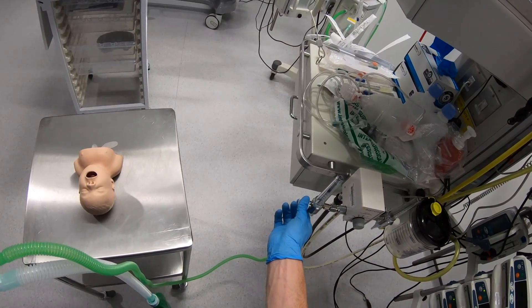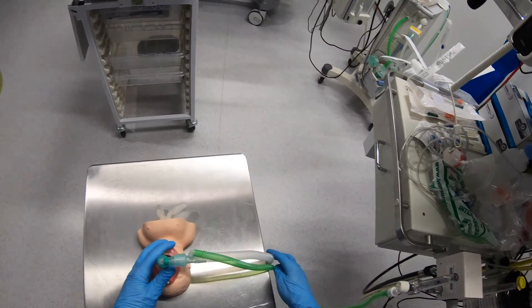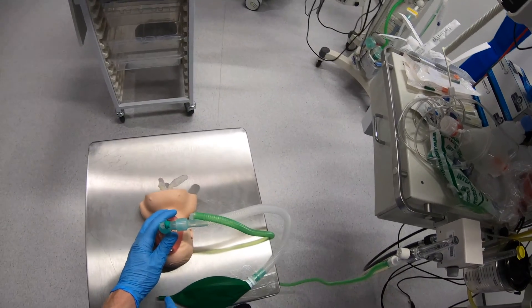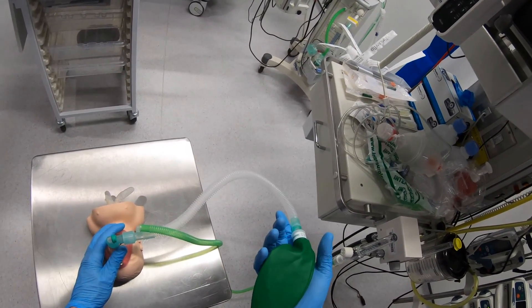I'm going to turn this on and put it up to about 5-6 litres. If I put this mask onto the patient they can breathe quite comfortably through this without me ventilating them or delivering any PEEP. What I'll notice is as they breathe, this bag will go up and down with respiration, so I can use this as a marker of how they're actually breathing.